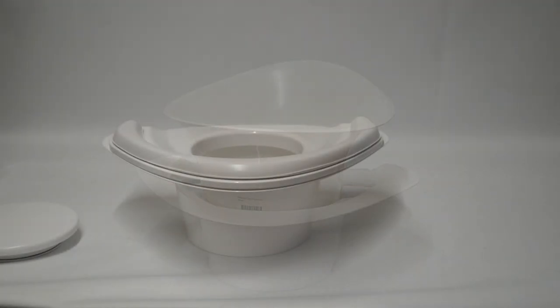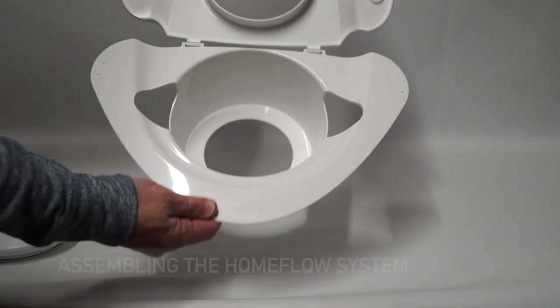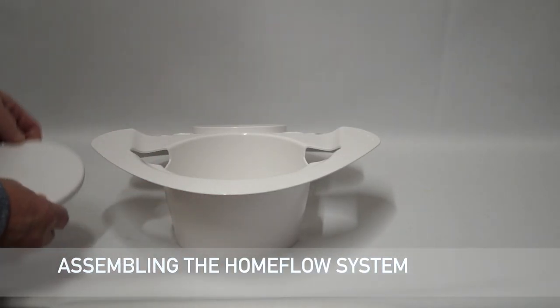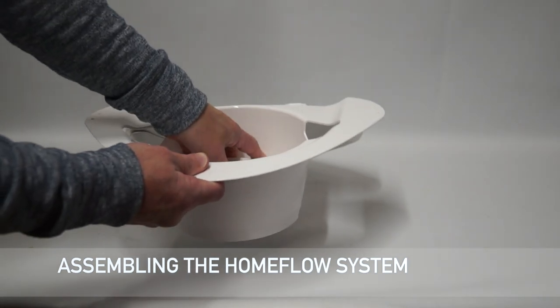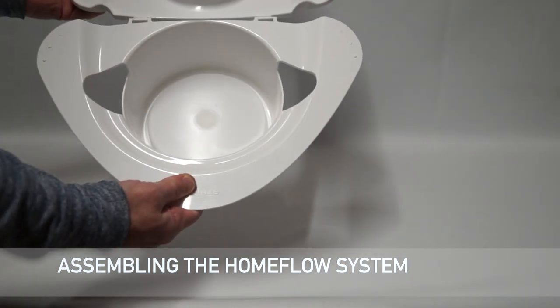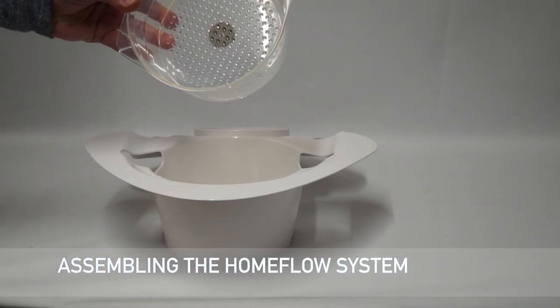If the Homeflow unit has been issued to a patient for use at home, it is assembled in the same way as the HospiFlow. However, instead of the HospiFlow cup, the Homeflow cup is used. This cup is easily identified as it is made from clear plastic.